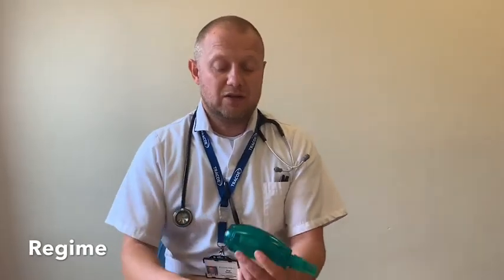While you're using this device, what you should feel is gentle vibrations across the chest. Your aim is to try and get them as low down as you can. When you first get the device, do play around with the dial at the front and see if you can move the location of the vibrations. Once you've got it set and you're happy with how it works, I'd recommend using it for between five and ten minutes, three or four times a day.